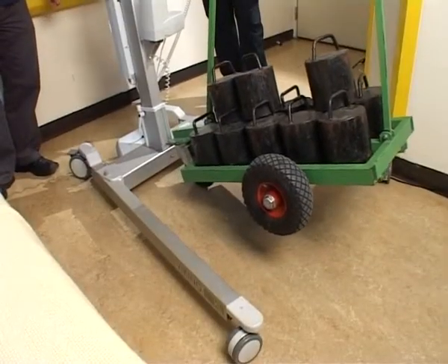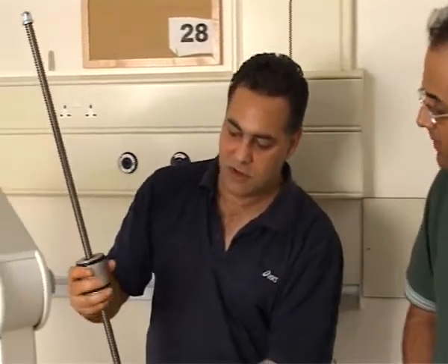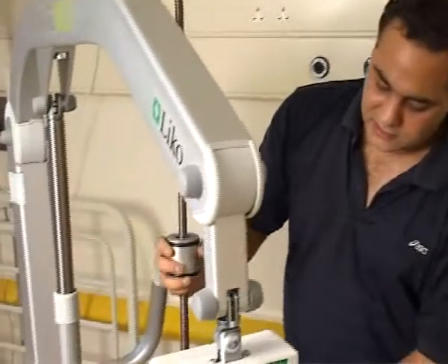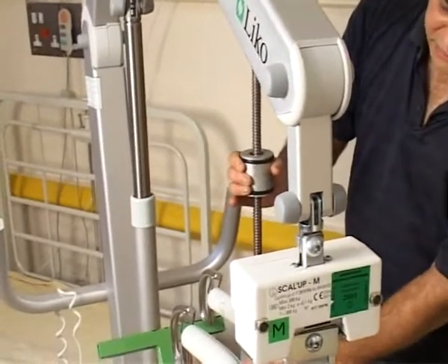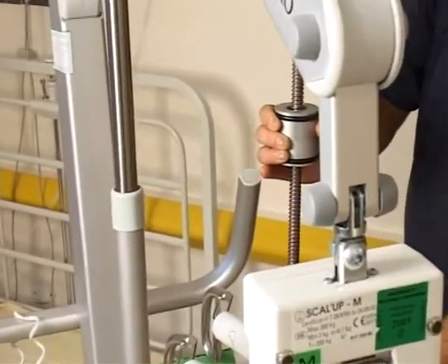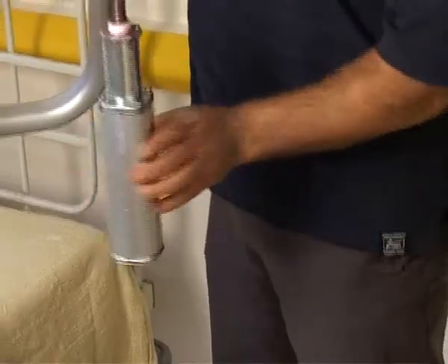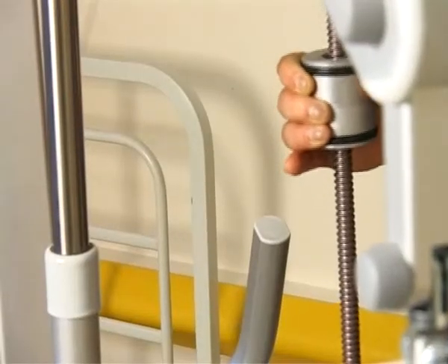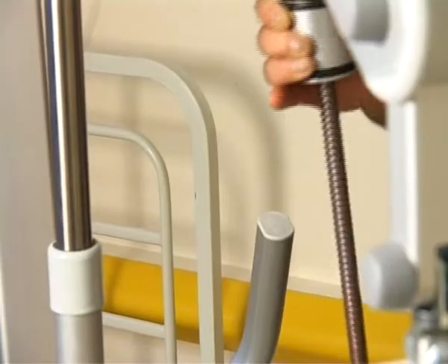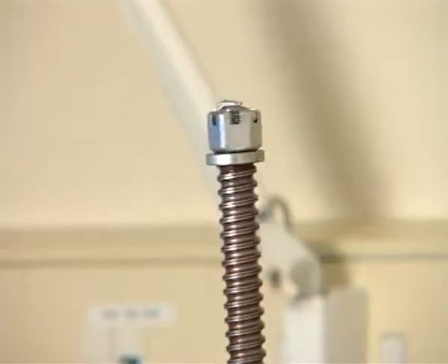That's right. I've got a similar lead screw here and motor, which I think I can explain how it works. This is the motor, and this is the lead screw, and this is the shaft. Once you activate the upward motion, this motor spins one way, and the shaft stays — the cylinder stays still — while the lead screw itself goes up and down the shaft, hence the upward motion. And if it comes the other way, hence the downward motion.